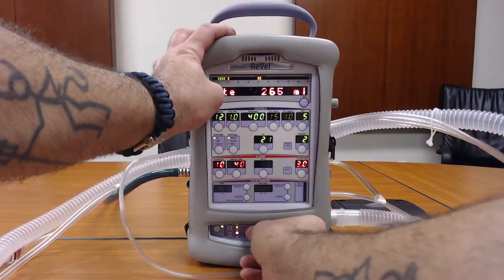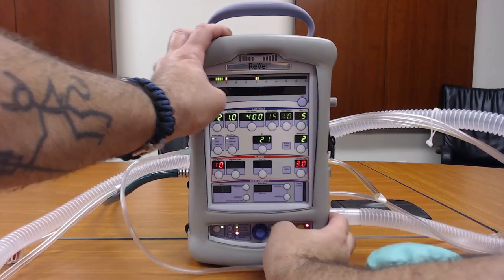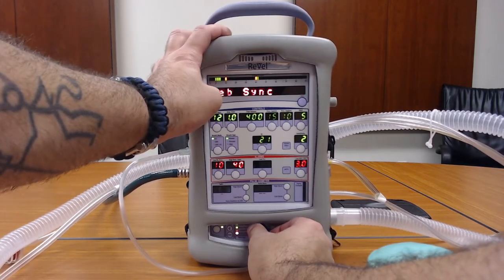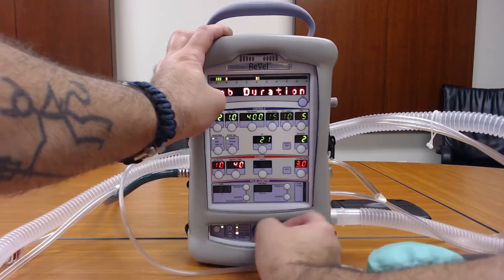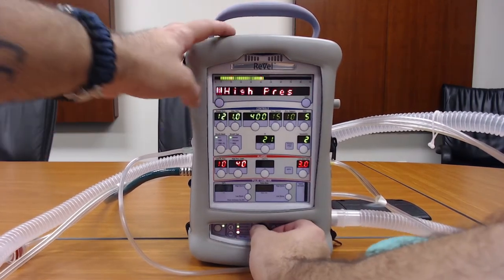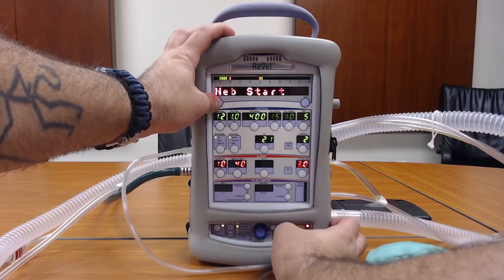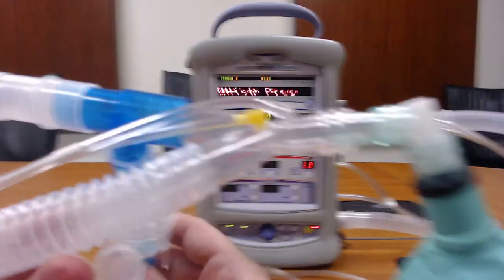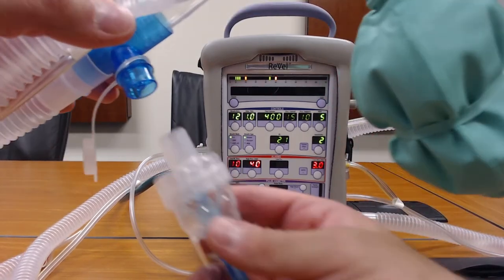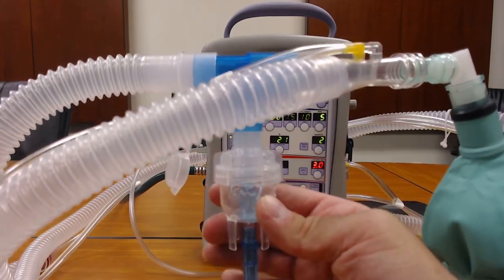We're going to go back into our menu, back into the nebulizer. We're going to do continuous, and the other option you have is nebduration — you can set it for as many minutes as you like; we'll leave this on 10 minutes. We'll hit select, and then you would hit nebstart. Now you can hear it's running continuously, and it will continuously feed medication through for the duration.